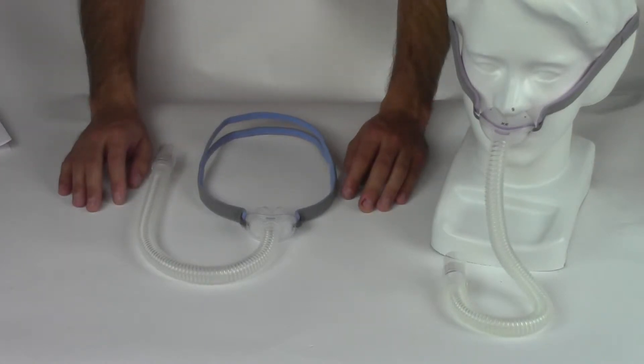Hello, today we're going to talk about the AirFit P10 Nasal Pillows Mask from ResMed.